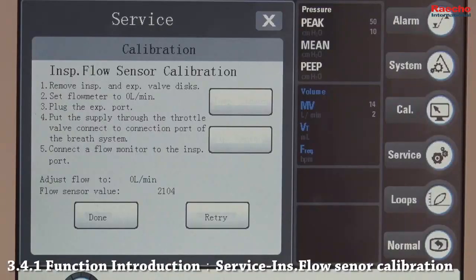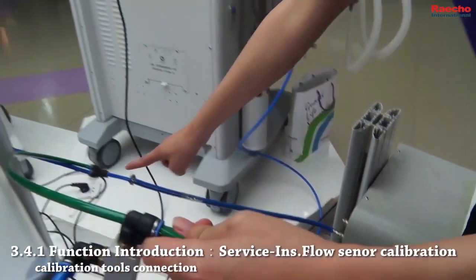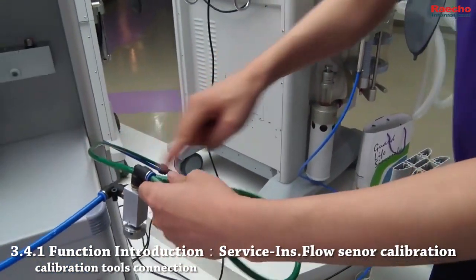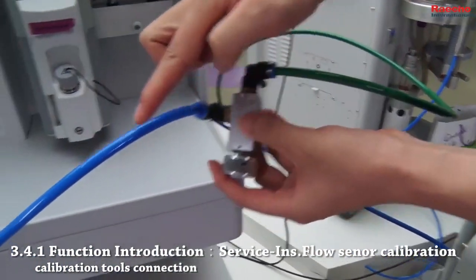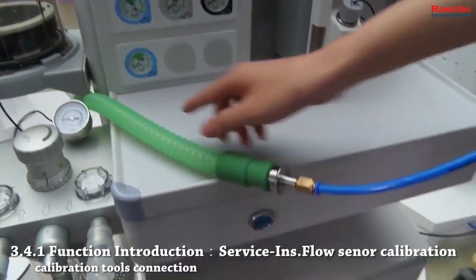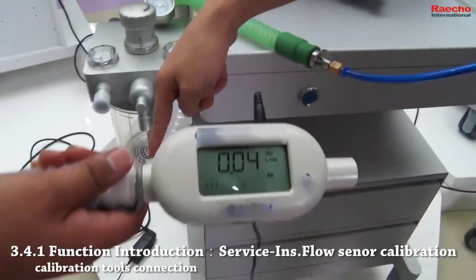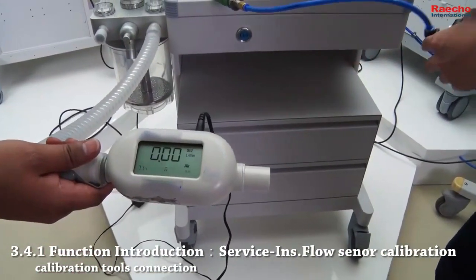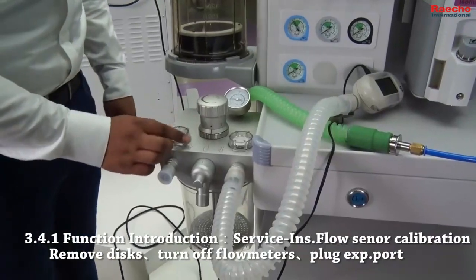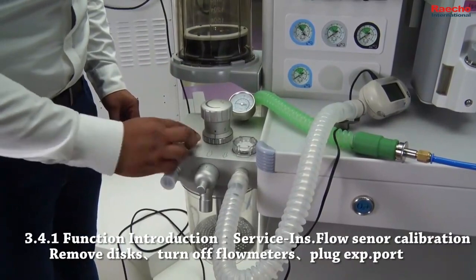To calibrate inspiratory flow sensor, follow the instruction on the screen. Here we can see steps 4 and 5, and here it's displayed how the calibration tools are connected. This is throttle valve. And this is VT monitor. These are steps 1, 2, and 3, so make sure to remove discs, turn off the flow meters, and plug the expiratory port.